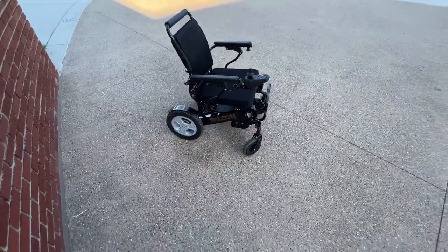Typically from the factory these come with about 18 and a half inches between the armrests. I added another three inches with a solid aluminum armrest spacer kit. There's a class of these chairs that are similar - the Eagle, the Falcon, and the Electra 7. These are aircraft-grade aluminum chairs that hold up to 400 pounds. You have the ability to charge both batteries on the port in front of the joystick, or you can take the batteries out and charge each individually.